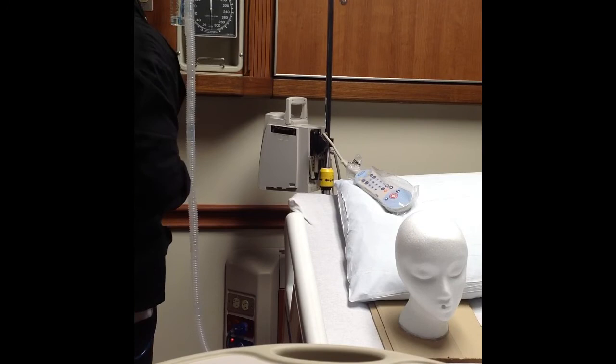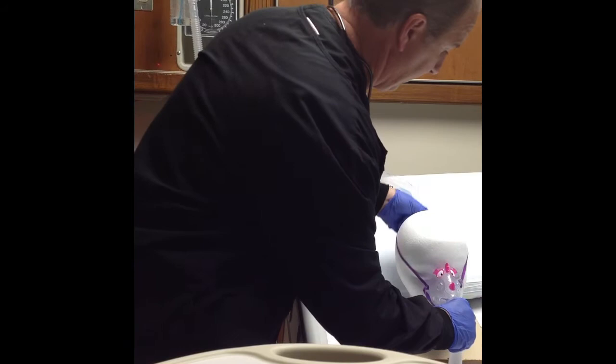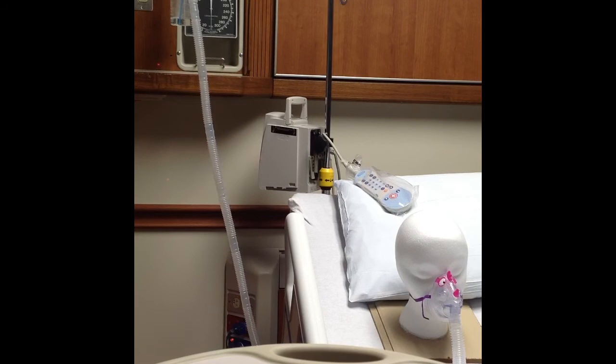That's going to run you eight hours. Attach your pediatric mask if it's a small patient, hook it up on that lovely mug you see there on the screen, and let it roll. You then want to check the child every hour — chart your heart rate, breath sounds — until the nebulization is done.